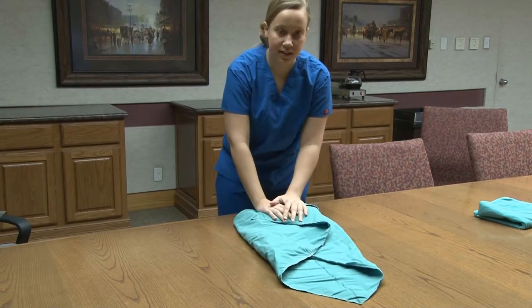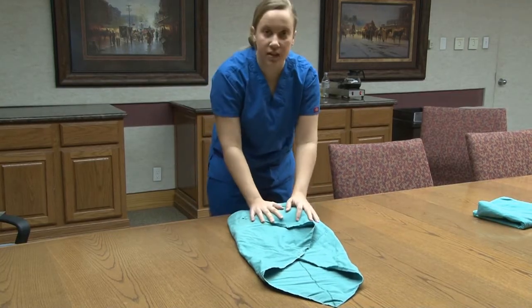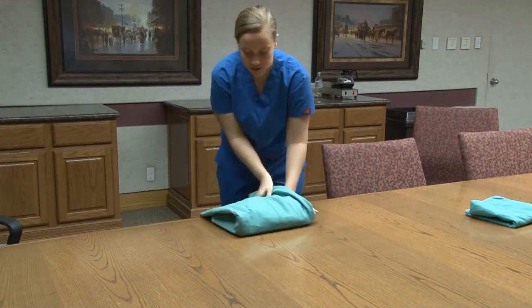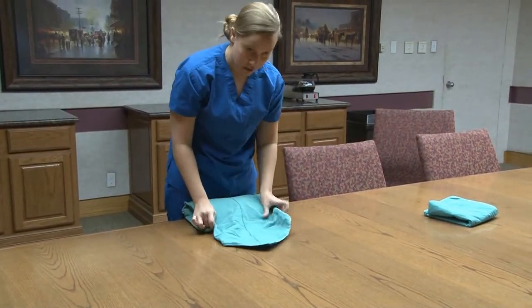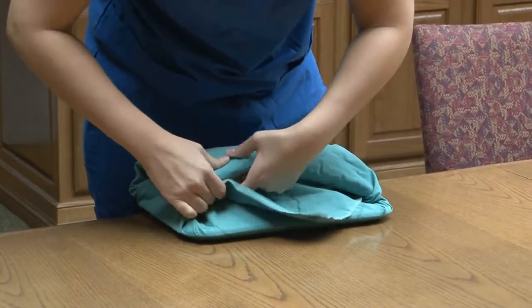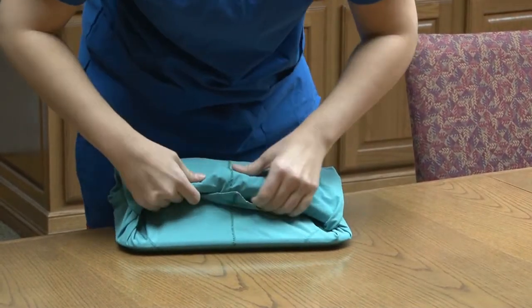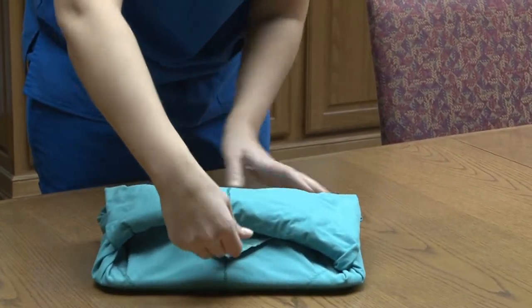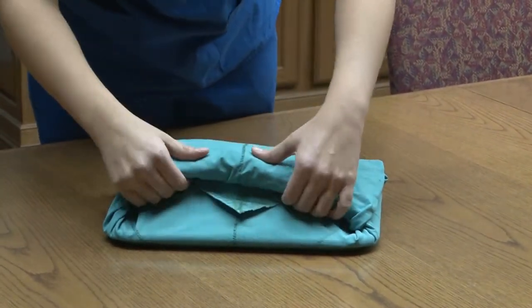Lastly, your final corner is going to be facing away from you and folded kind of like an envelope. You bring that towards you and there's a nice pocket for you to push the material into. You will be left with a little flap, and the last corner is always facing out so that the person unwrapping the pack can pull it out and nicely unfold the surgery pack.